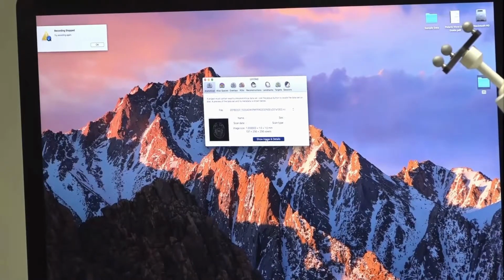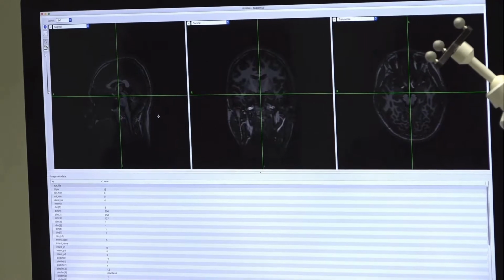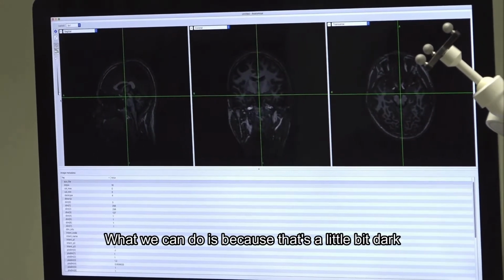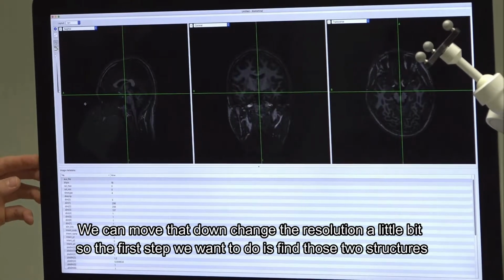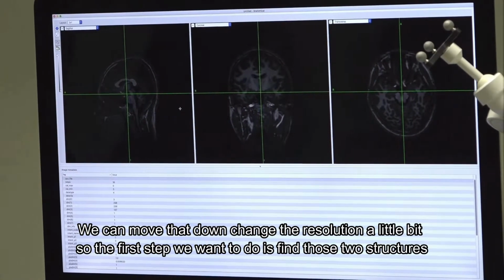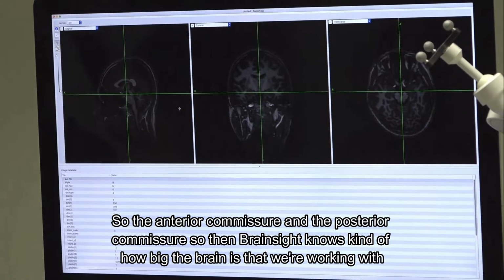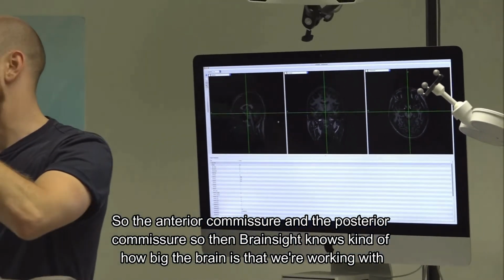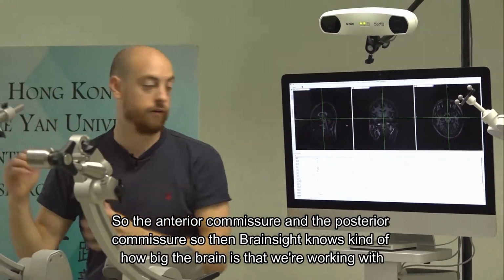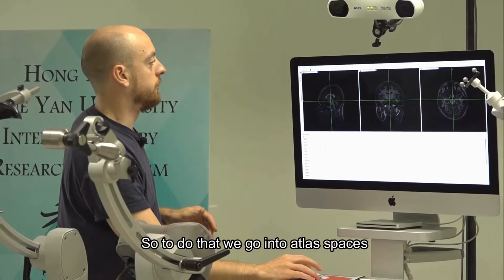That looks as though it's a bit better. Okay, excellent. So we've got MRI data there. Because that's a little bit dark, we can move that down and change the resolution a little bit. The first step we want to do is find those two structures, the anterior commissure and the posterior commissure, so then BrainSight knows how big the brain is that we're working with. To do that, we go into Atlas Spaces.